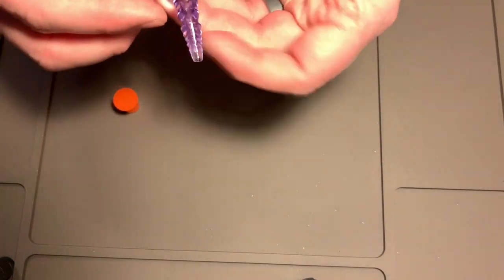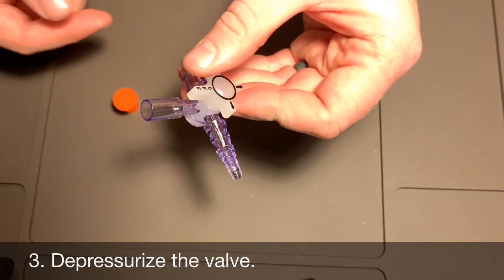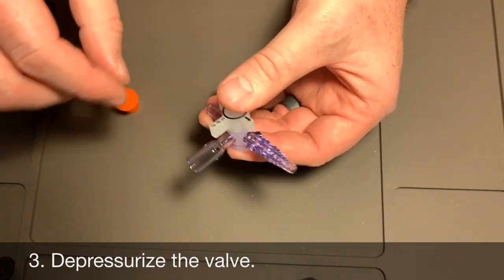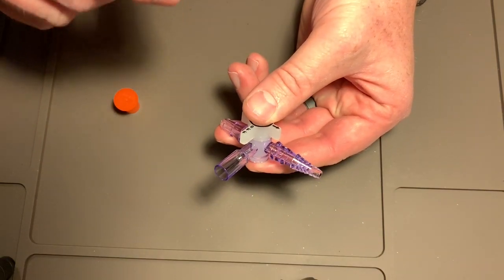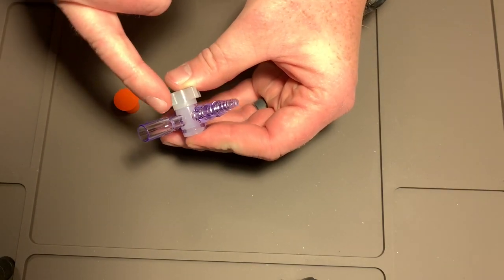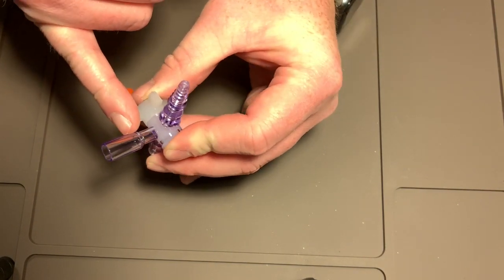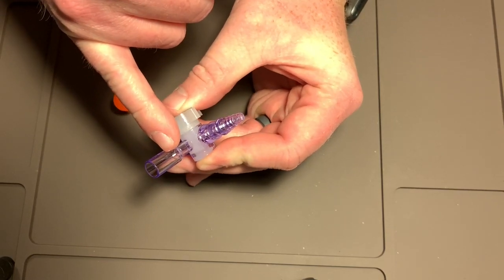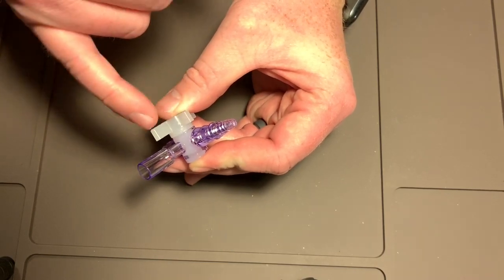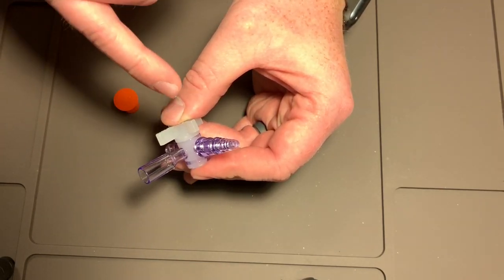And then our last tip, I've actually got some milk over here so you can kind of see. I'm going to try and get a really good angle on this. But you want to depressurize your Lopez. And what I mean by that is anyone who's ever used these knows that once you put your meds down into here, there's always just a little bit of something that ends up stuck in the bottom here, and it doesn't seem to always go in.